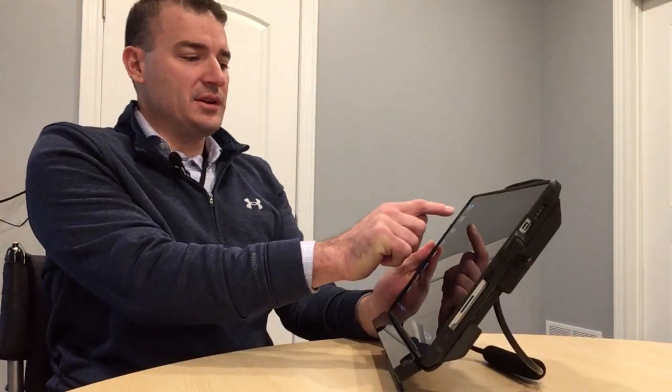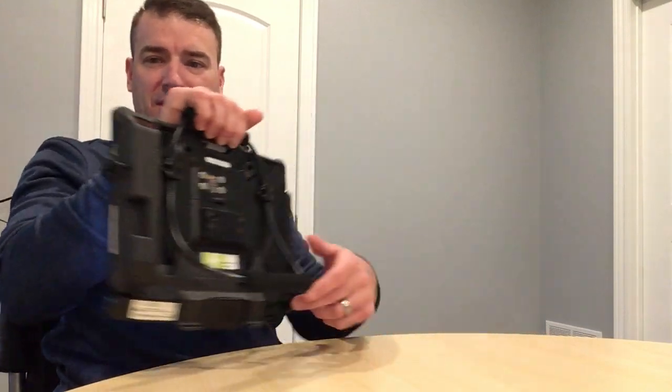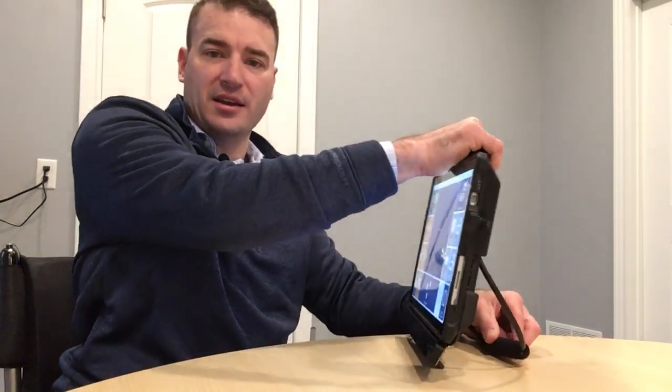I'm going to relaunch the software and show you a quick demonstration of eye tracking and how powerful it can be. I'm going to go to one of my calibration screens — I don't really have to do this because I've already calibrated this device for me, but for the people that haven't seen this before, I think it'll be helpful.